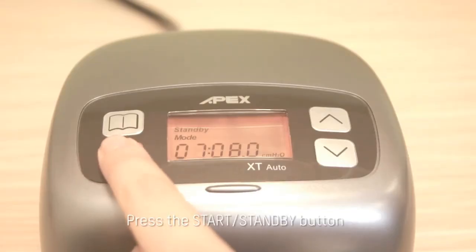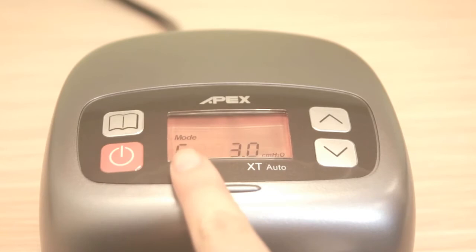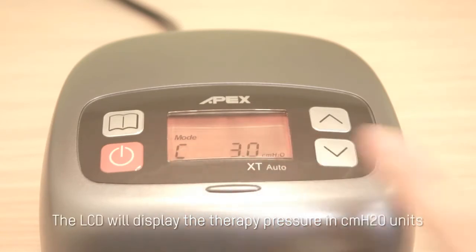Press the Start Standby button. The LCD will display the therapy pressure in CMH2O units.